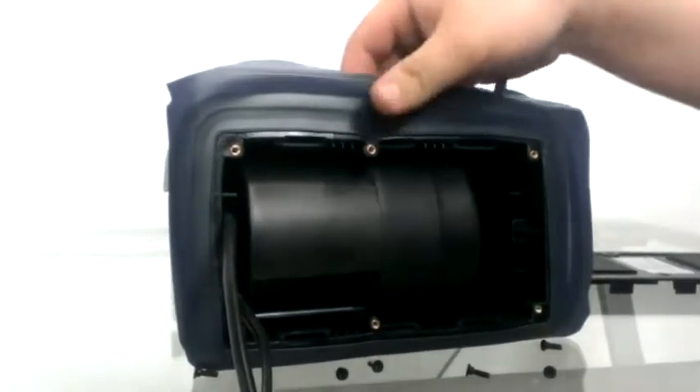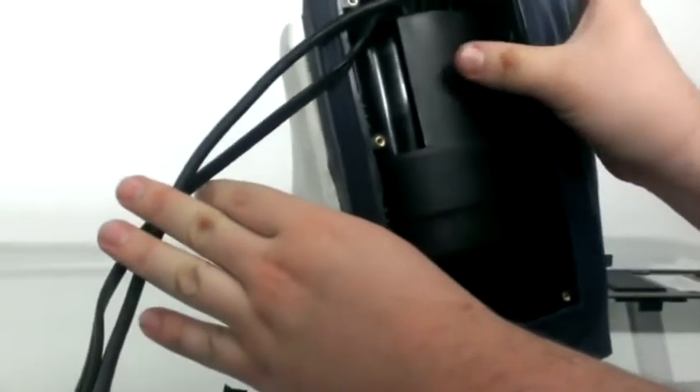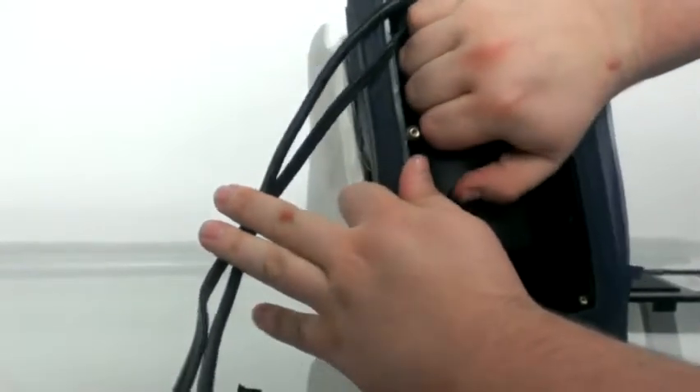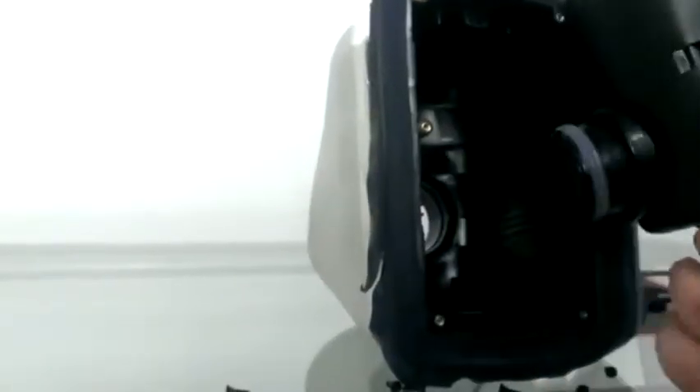Place the faceplate to the side. You'll notice on the bottom of the pump there's an indentation where your fingers can fit right in to grab the pump. Just apply pressure there and put your fingers in to grab — you'll be able to pull that pump right out. It may take a little bit of force, but it will come out.